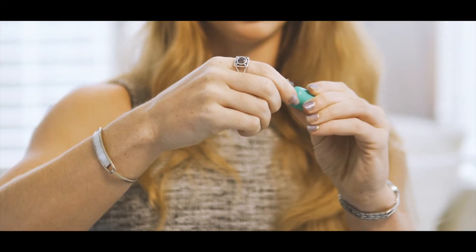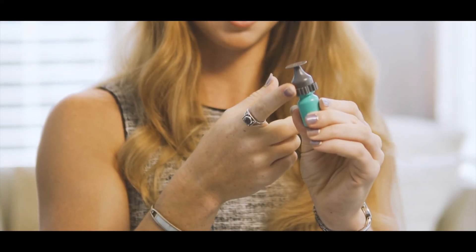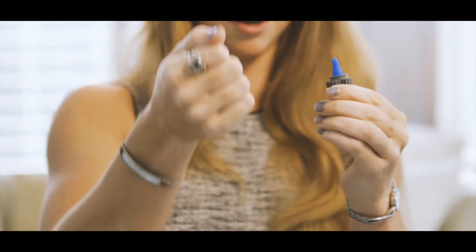Then we needed something that makes the drop smaller and that's the tip's job. Then we knew that we just wanted to keep the bottle contaminant free, and so that's why it comes with its own cap to keep any additional contaminants away from the tip. Just like how you normally install the cap, now the Nano Dropper takes that place and then you pop off our cap.